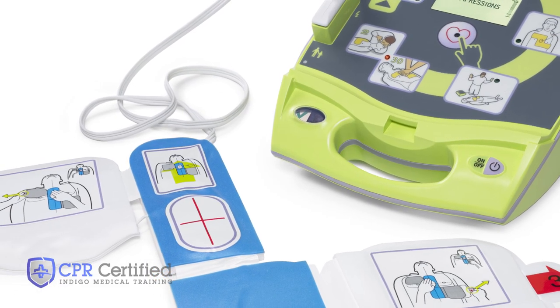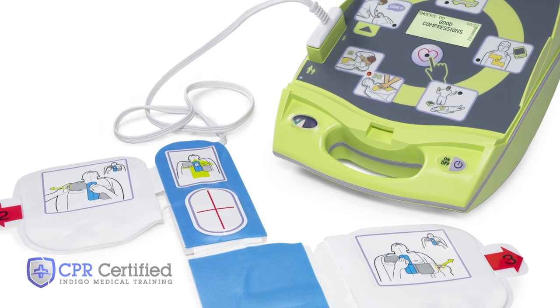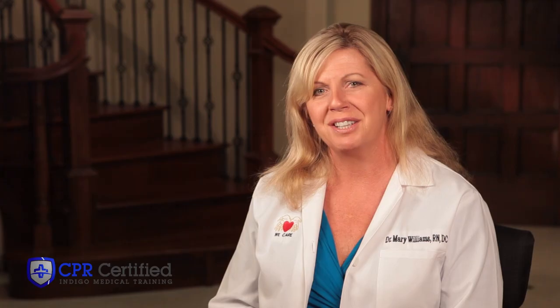These are wonderful machines which have made a huge difference in the recovery of cardiac arrest victims. Don't be nervous, it's really very easy to use. Research shows that more than 95 percent of cardiac arrest victims die before reaching the hospital. A victim's chances of survival are reduced by 7 to 10 percent with every minute that passes without CPR and defibrillation. Few attempts at resuscitation succeed after 10 minutes.